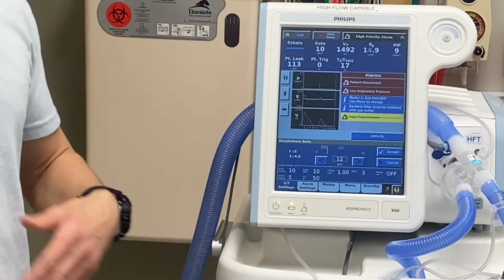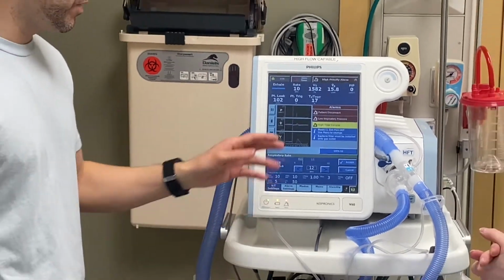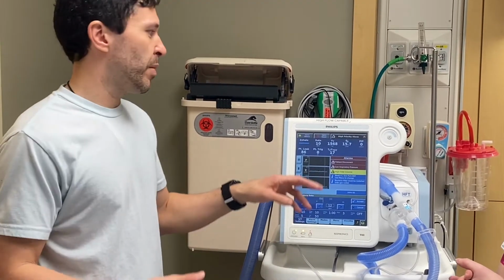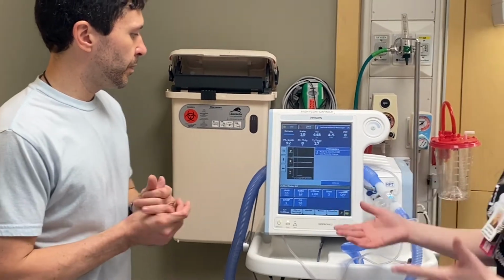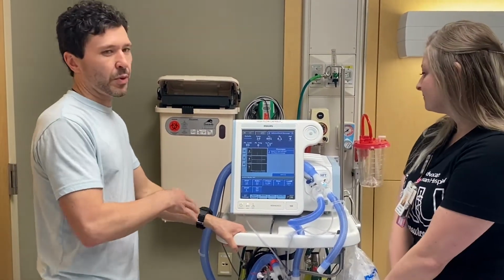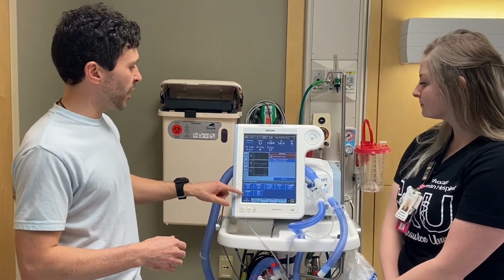If they're in distress and it's more of an emergency situation, you can crank that up to the 20s, whatever. It's not actually giving a breath. It's just giving that pressure time. So basically, if someone is not breathing enough for 12 times, this will make sure that we get there. They can breathe as much as they want. It'll keep up, but it'll try and guarantee every breath.